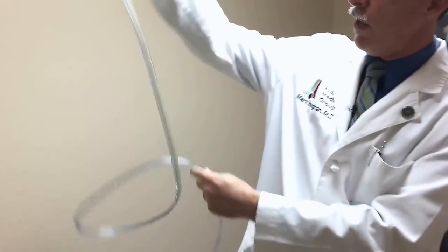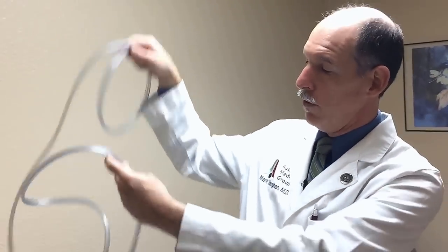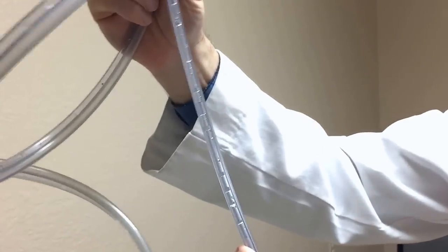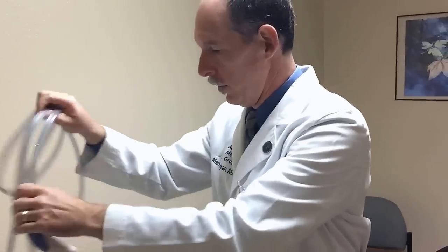I've been pleased with it. The only complaint I have is it takes a while to drain all the water out of all this tubing. You can even see there's still some water from weeks ago when we used the device. You can run some alcohol through it to dry it — we've done that before to do it a little more quickly.